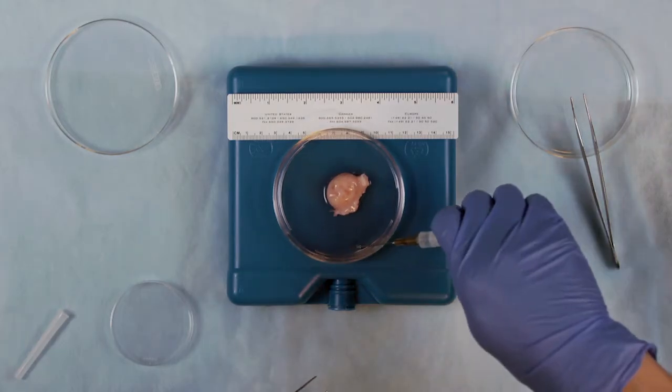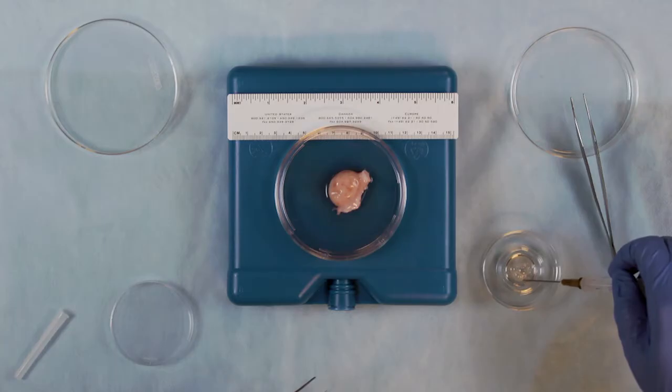The immature oocytes can be cultured up to 48 hours. Any mature oocytes can be vitrified for patient use.